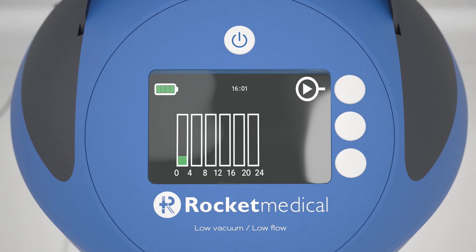Screen 4 shows the PSU's unique absence of air leak indicator. This indicator is designed to enhance confidence in clinical decision making by displaying the status of a patient's air leak over time. The indicator is divided into six four-hour columns, providing a 24-hour view. Columns fill up from left to right, with each column providing a visual representation of the patient's air leak status over a four-hour period.